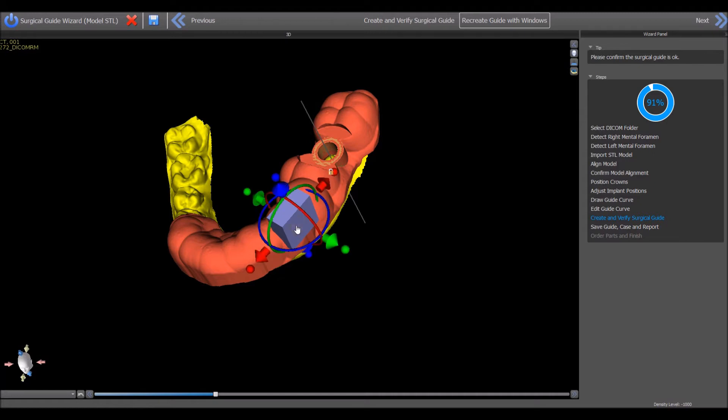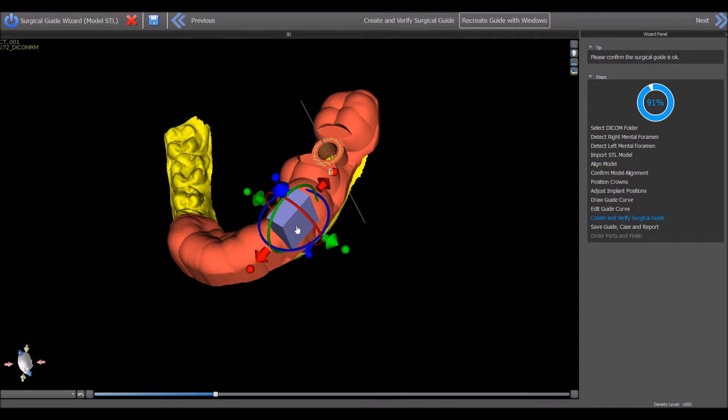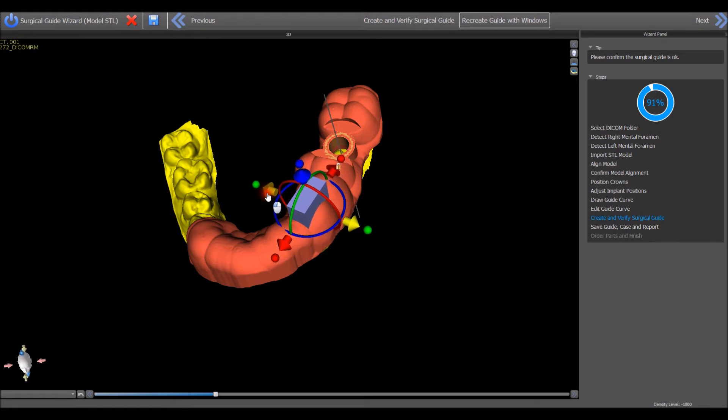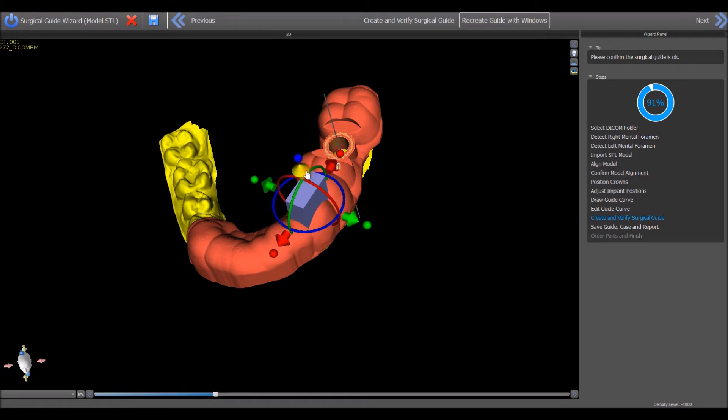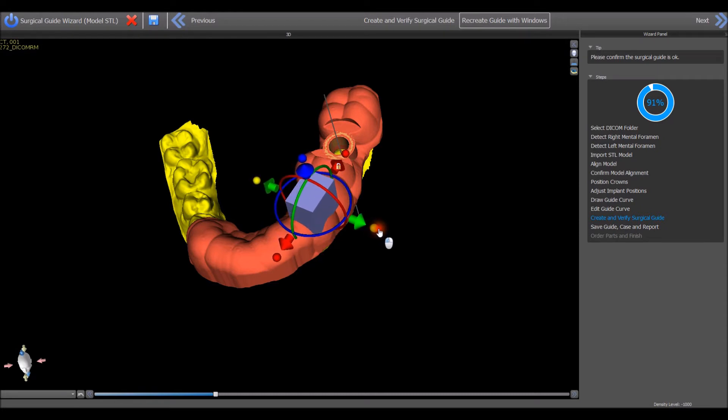Moving your mouse over the block will cause the rotation and movement widget to appear. Use your left mouse button to grab and drag any of the arrows to move the block in any of the six directions. Use your left mouse button to grab and drag any of the dots surrounding the block to resize the block.